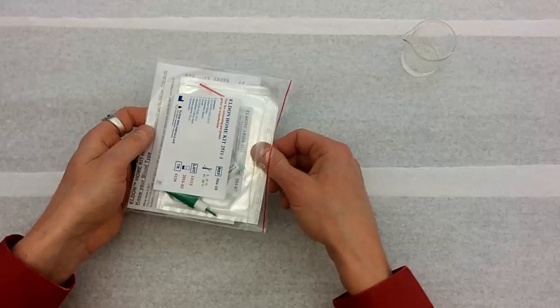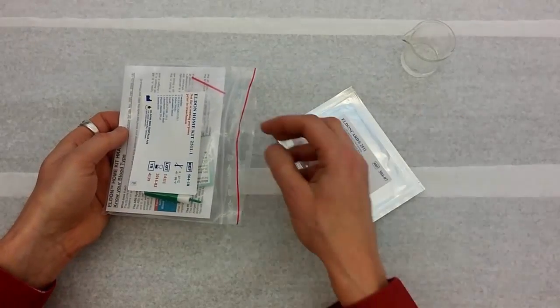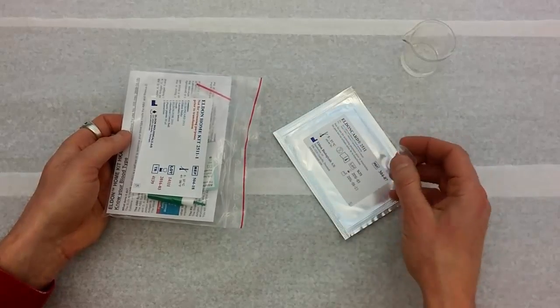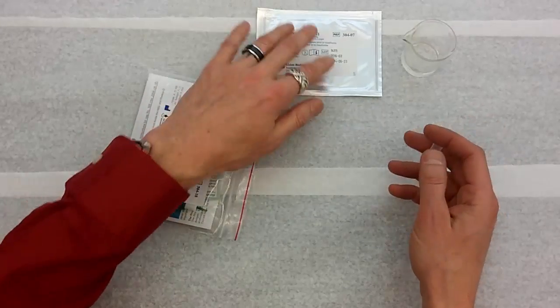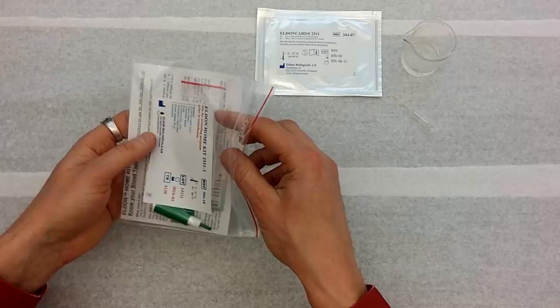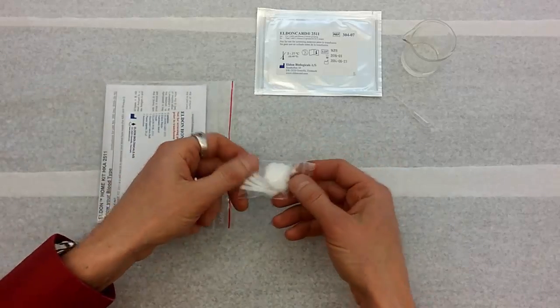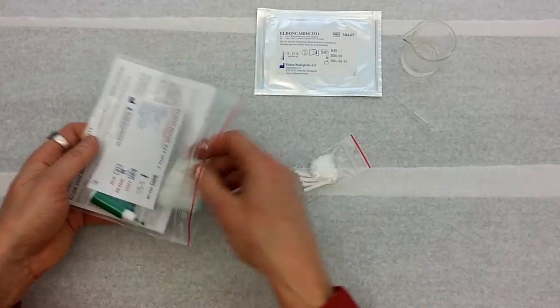I'm going to open up the kit. These kits you can find online usually for around $10. I found them on Amazon and another place called Home Science Tools. This is the actual card inside a foil package, I'll open that up when we're ready. This is a plastic pipette that we'll need for water. This is a plastic bag that has a cotton ball and some spatulas in it to collect the blood.